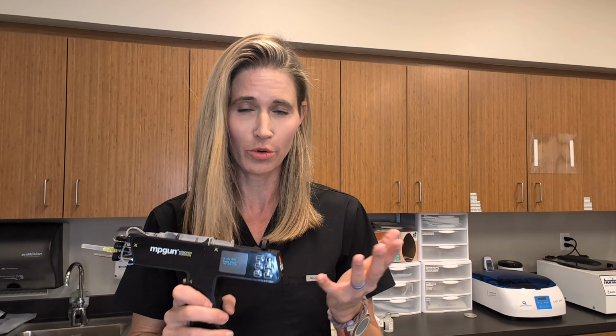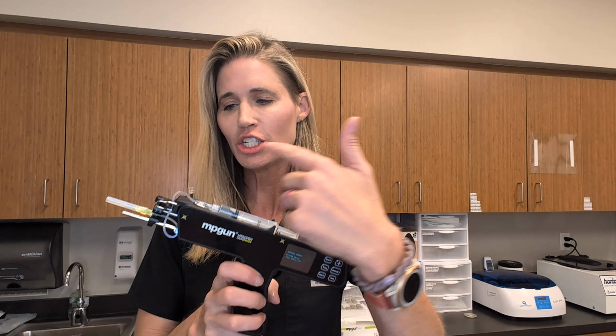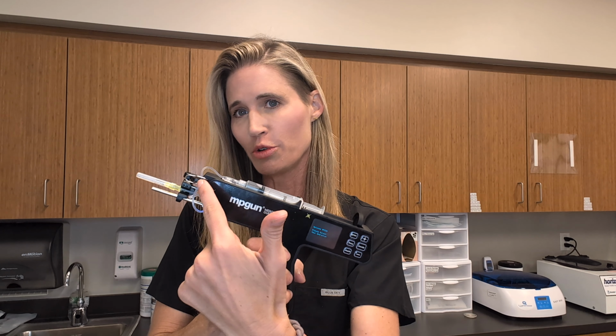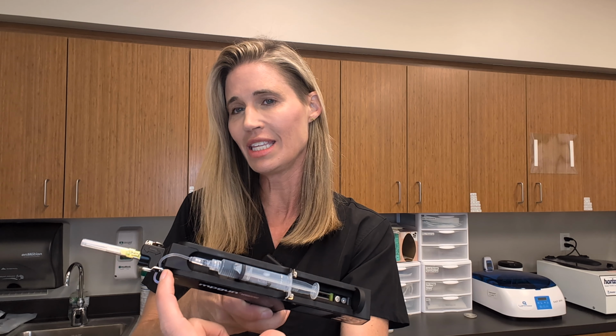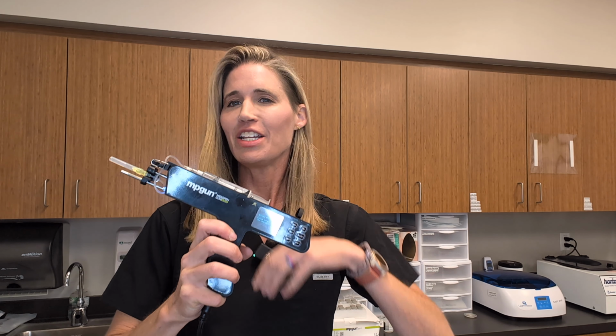All right, this video is about how to use your MPGun in gun mode. So your device is all set up. You have your syringe, it's correctly attached. You've looked to make sure your tube is going through that door number 2 appropriately. It's all the way in there in that groove. You have your needle attached. It's nice and snug and you're ready to go.